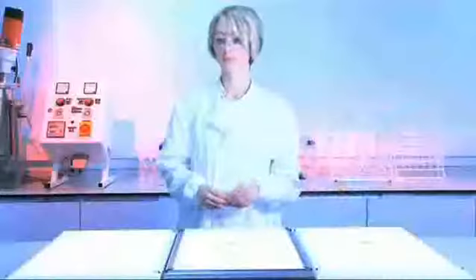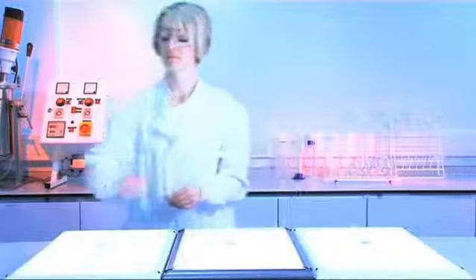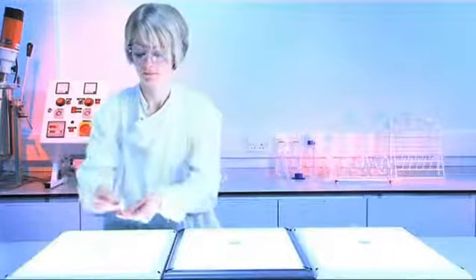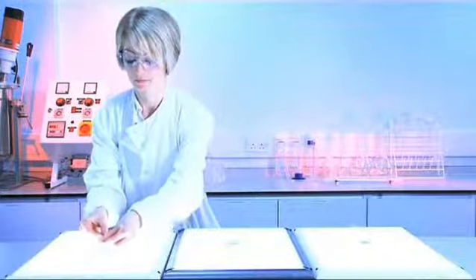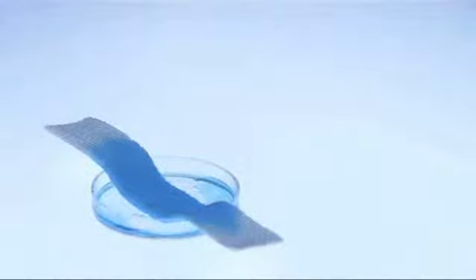Now, we place each sample strip on top of a petri dish cover and gently push the sample into the dyed physiological saline solution. When the gauze comes into contact with the fluid, it wicks to the end of the sample, moving beyond the walls of the petri dish.